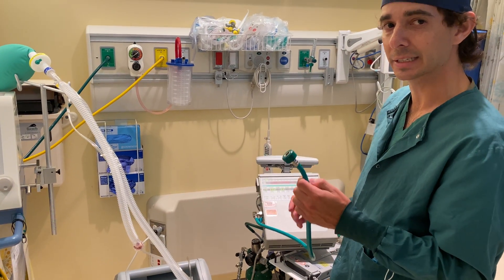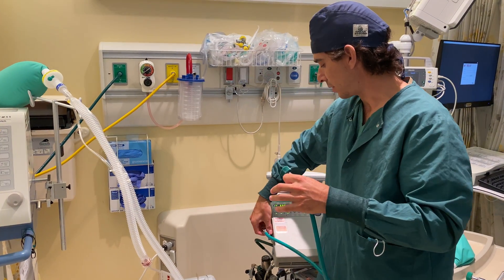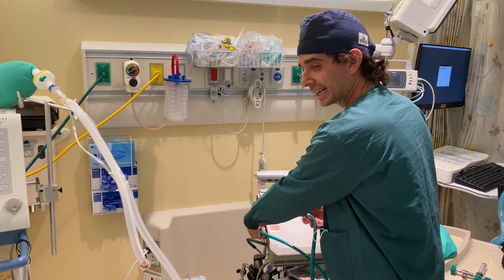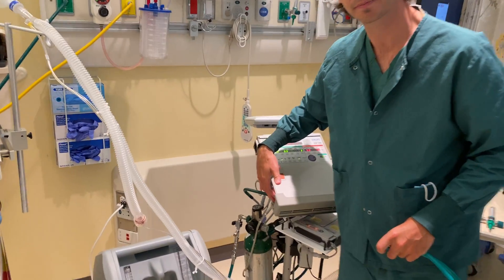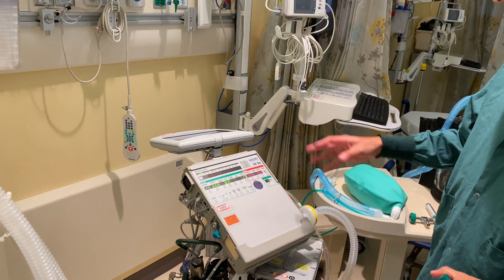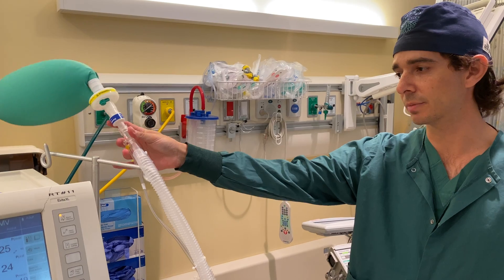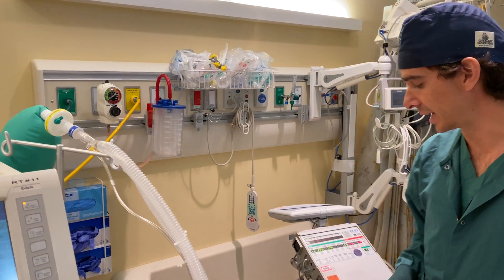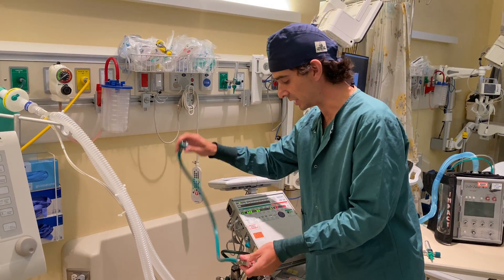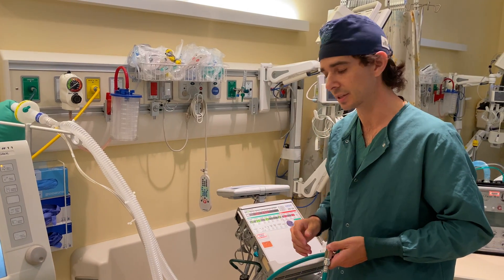I don't have the oxygen cylinder connected to the ventilator at this time. Right now the vent is running and is sucking in room air through this port here, through a turbine, and providing at pressure oxygen through the system — but again, room air at 21% oxygen. If I want to get a higher concentration of oxygen, I need to provide it with a source of oxygen. My options are to use this connection into a tank or into the wall, in which case it can deliver the same amount of oxygen as this device.